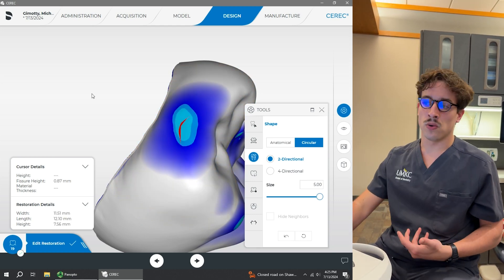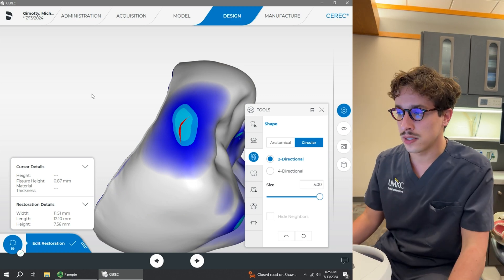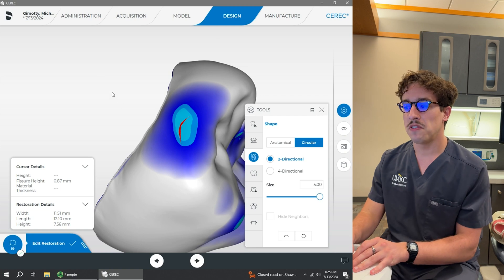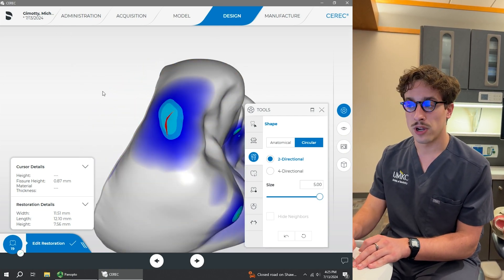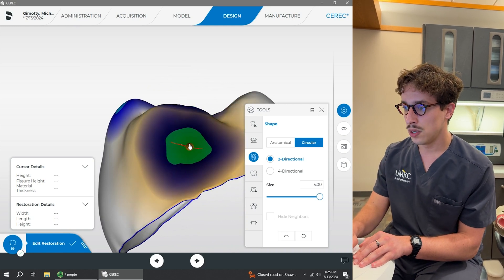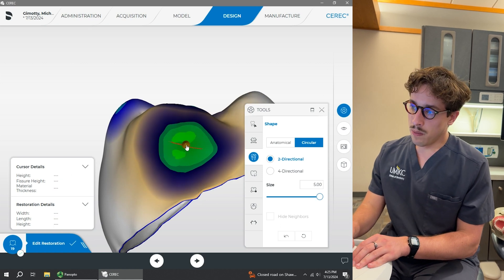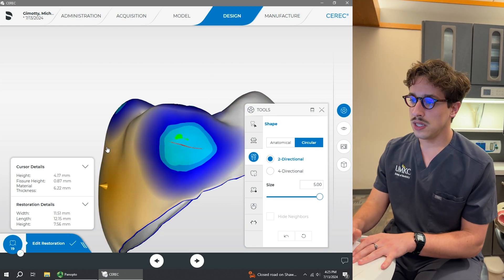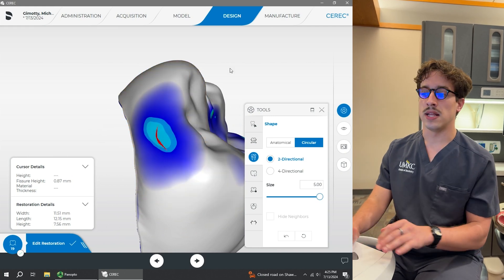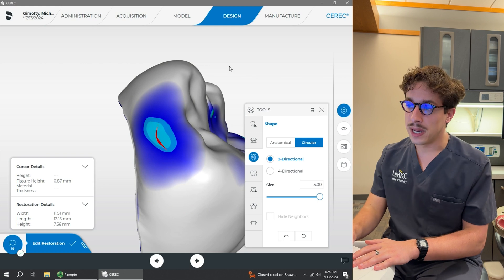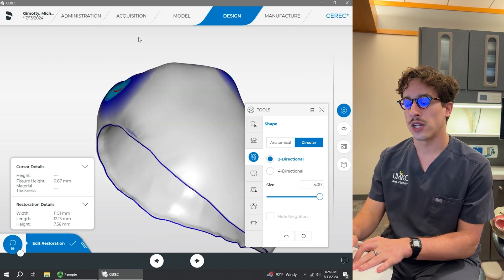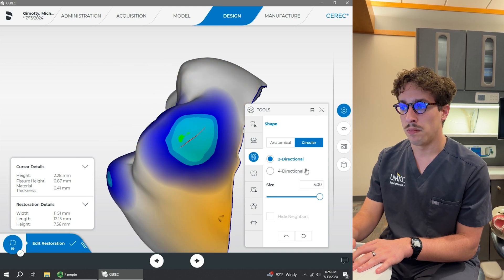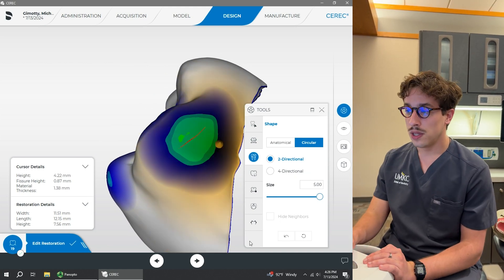This is where your morphology comes in — contacts between molars are going to be broader buccal-lingually than, say, a canine next to a lateral incisor. You have to be aware of what teeth are adjacent to it. In this case we've got a premolar on the mesial and a molar on the distal. On the mesial contact, I like that it's not super tall occluso-gingivally but is a little bit wider buccal-lingually and kind of replicates a more natural contact. But comparing on the distal, you can see how it's very tall from an occlusal perspective.